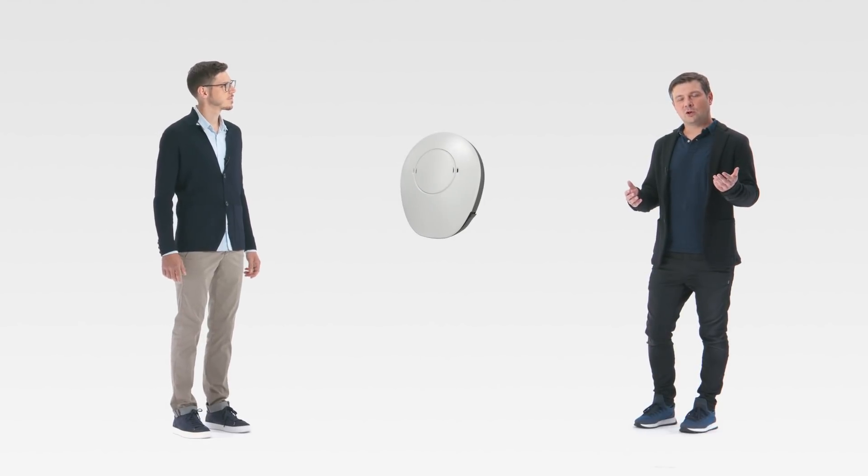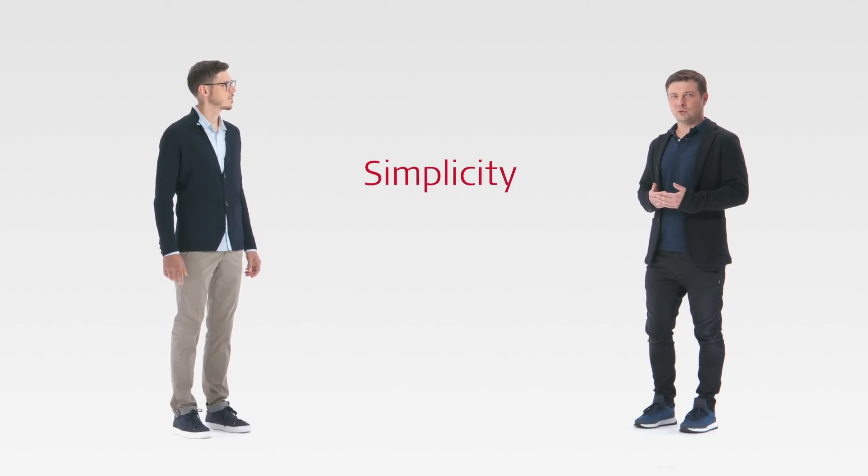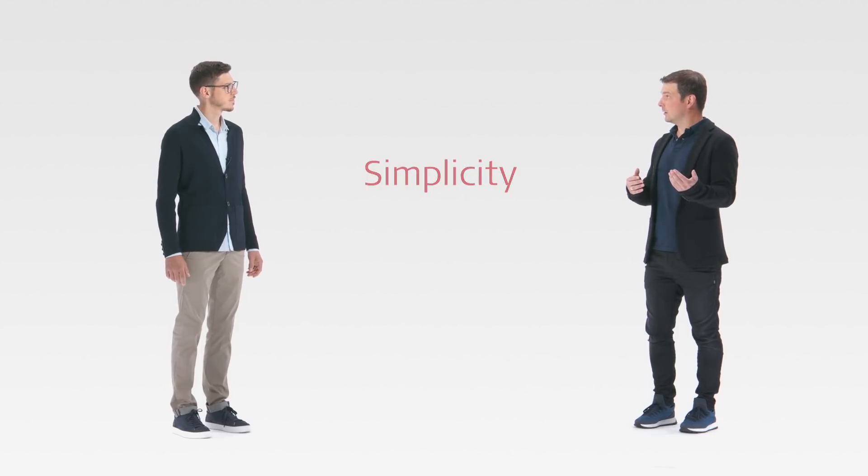With Samba2 we have created an audio processor that our users can just put in in the morning and forget about it until the evening. Simplicity is at the heart of Samba2, which combines intelligent hearing technology with a super intuitive handling.